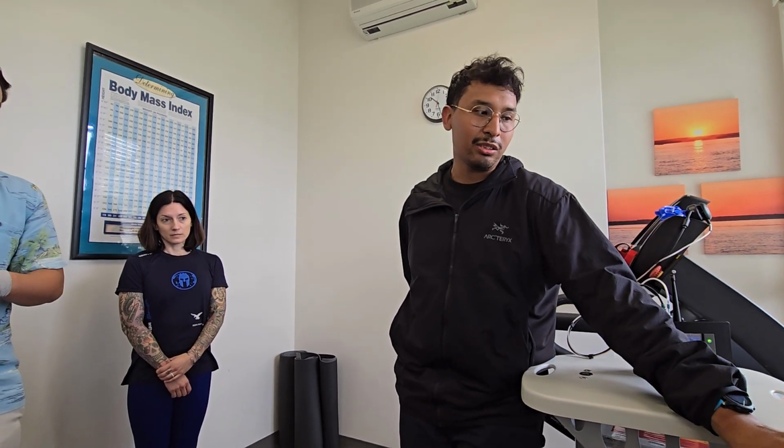From here, if you're connected to an ergometer, you'd select what it is. So just click Cosmed Treadmill. You could choose a protocol, and then you would select what port you're in.